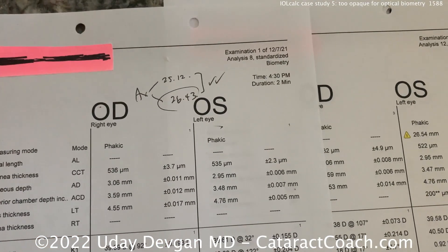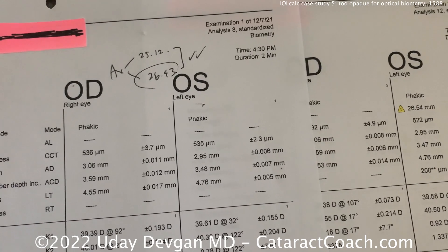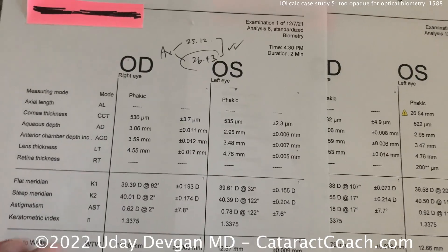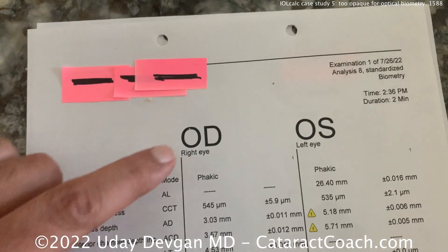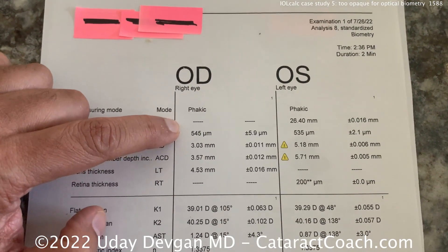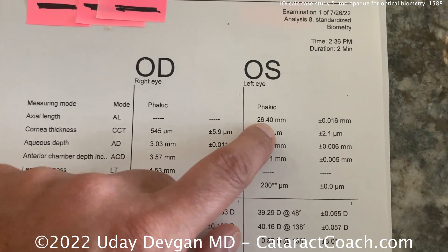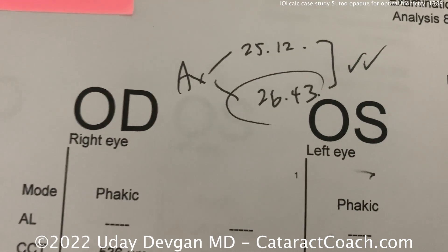We could also consider intraoperative aberrometry or leave the patient aphakic, do the refraction, then go back to the OR. But I trusted my measurements and put in a 20.0 diopter lens for a goal of minus two — and we got exactly the outcome we wanted. The patient came back; the left eye is already pseudophakic, and now the machine reads it accurately at 26.40, versus my hand measurement of 26.43 — pretty good.